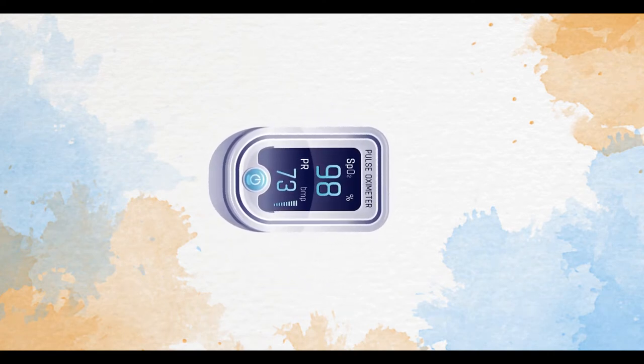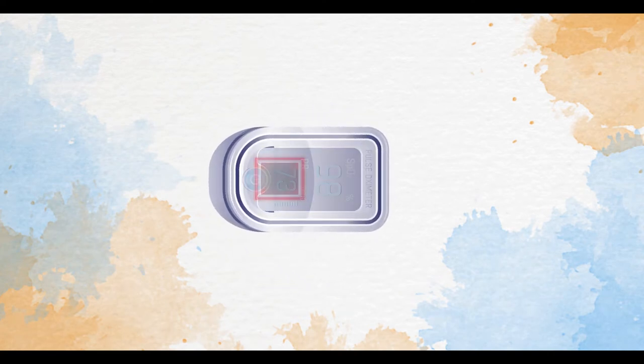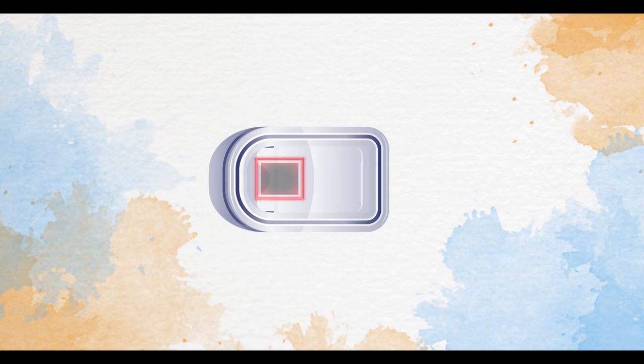Let's take a look at what's going on inside the pulse oximeter device. Primary components are going to be the light emitting diodes or LEDs and a photosensor.